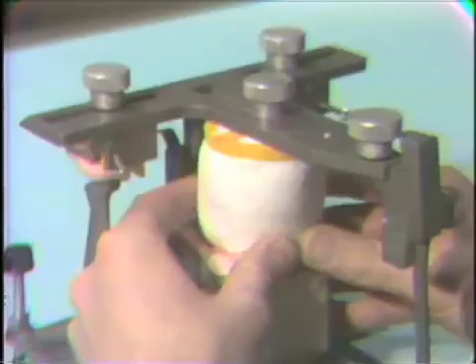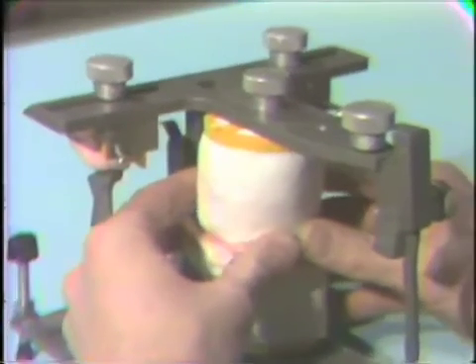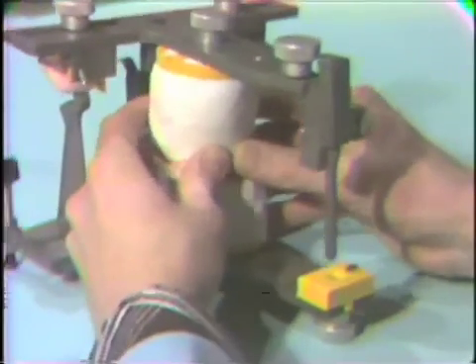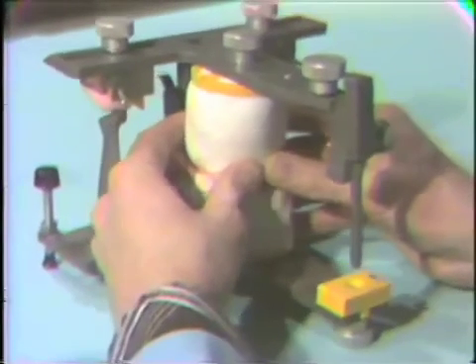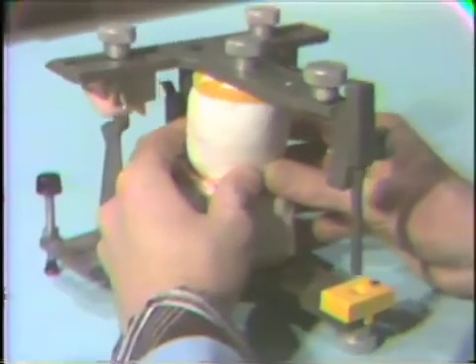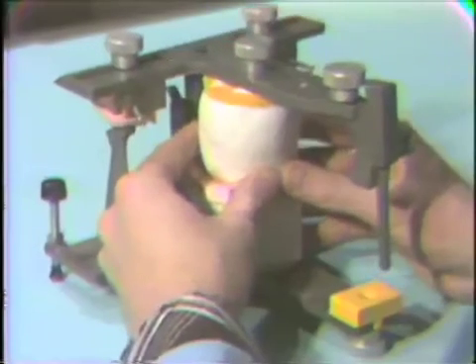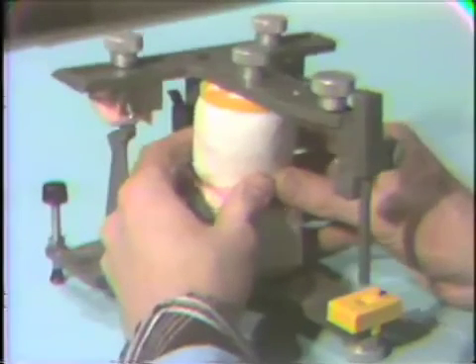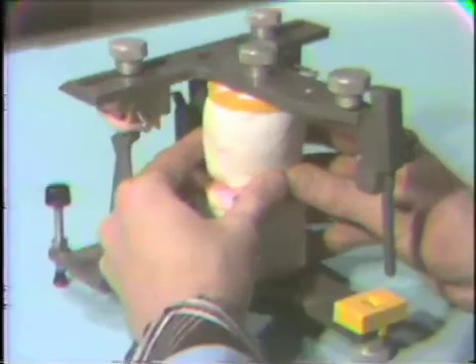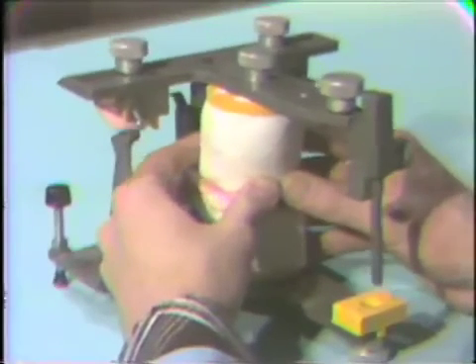Again, make sure that your incisal pin in the front is not in contact through any of these motions. This is extremely important. Once our condylar acrylic is set, we can go ahead and trim off the excess, and the articulator is essentially programmed and ready to accept our cases.